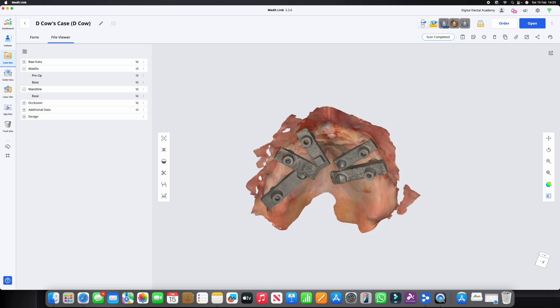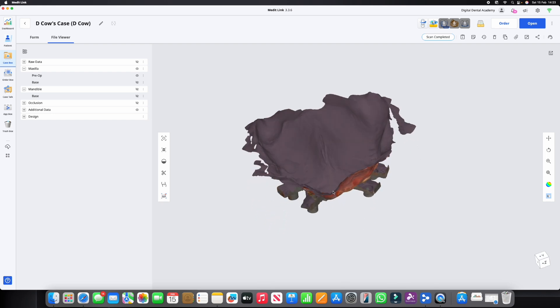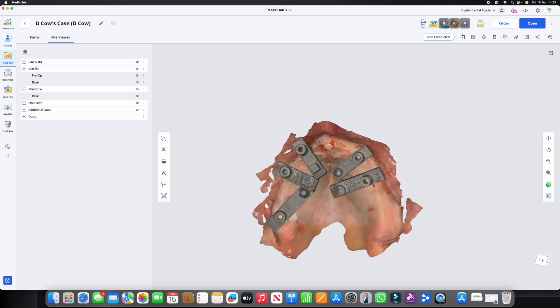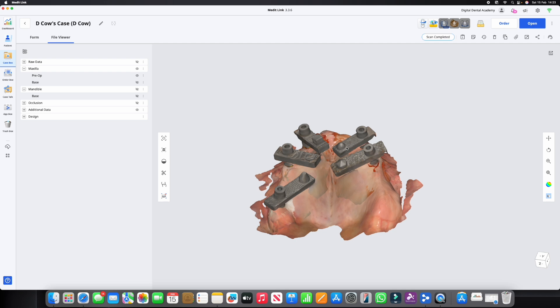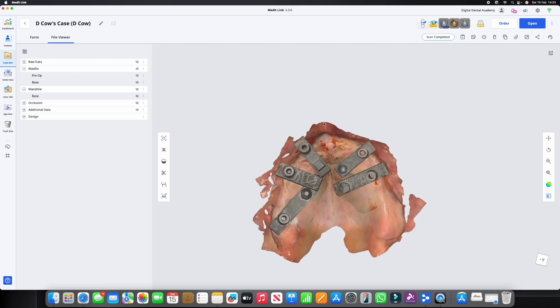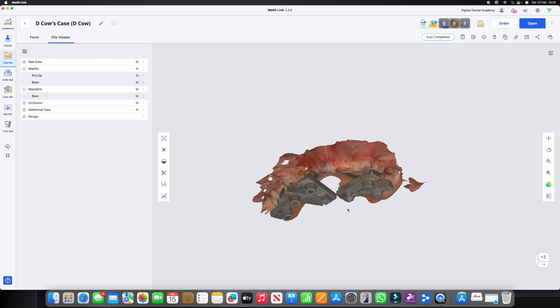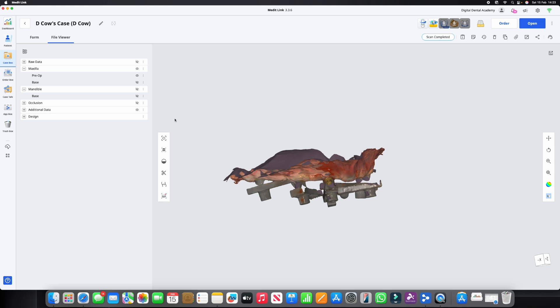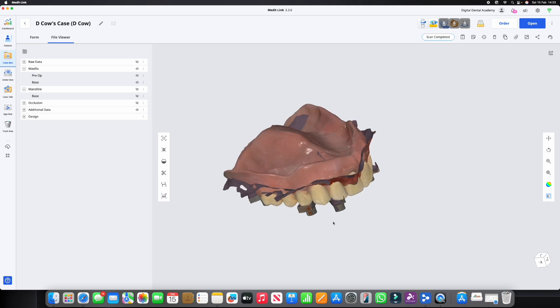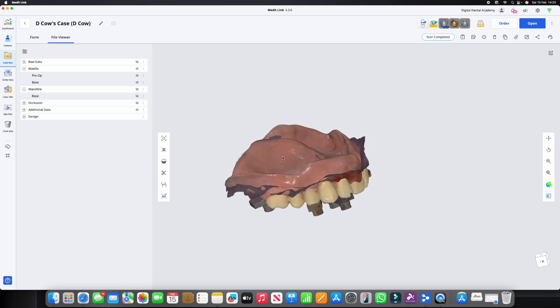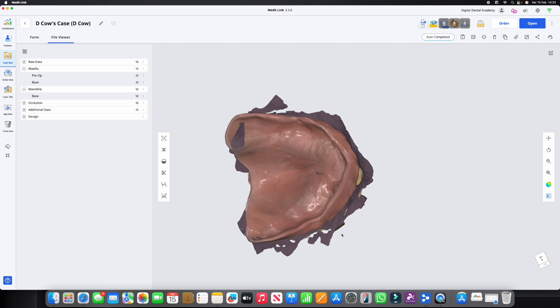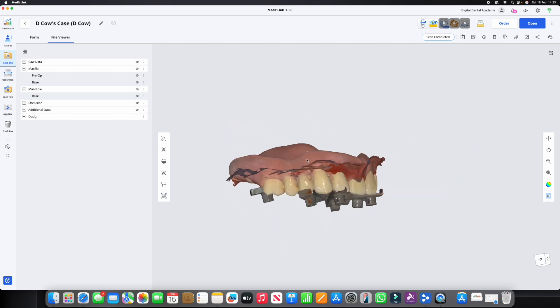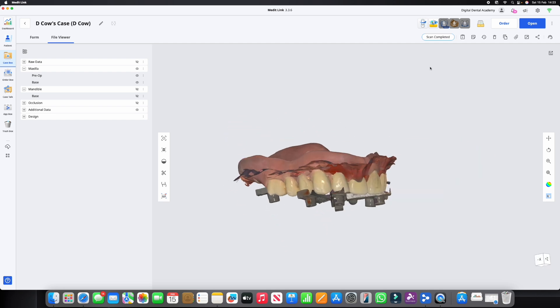Both of those are wrong. I'm going to show you how to match these with this denture so that it brings it up and matches in with this. Super super quick and easy. So the first thing we're going to do is we're going to go to Medit Design.